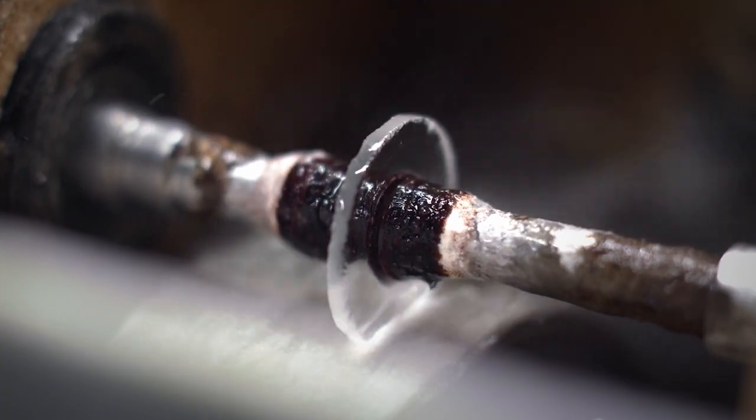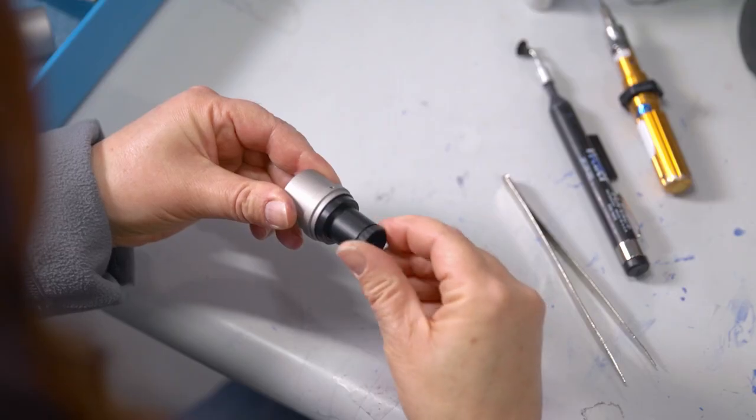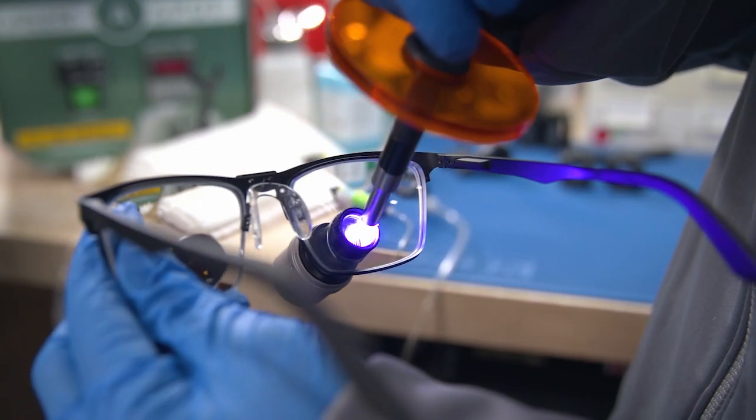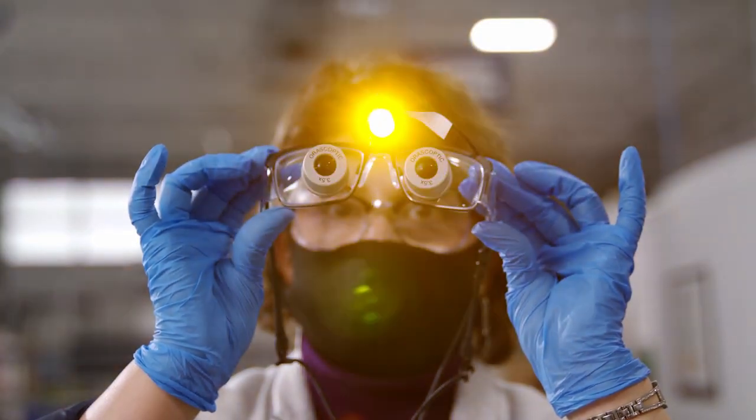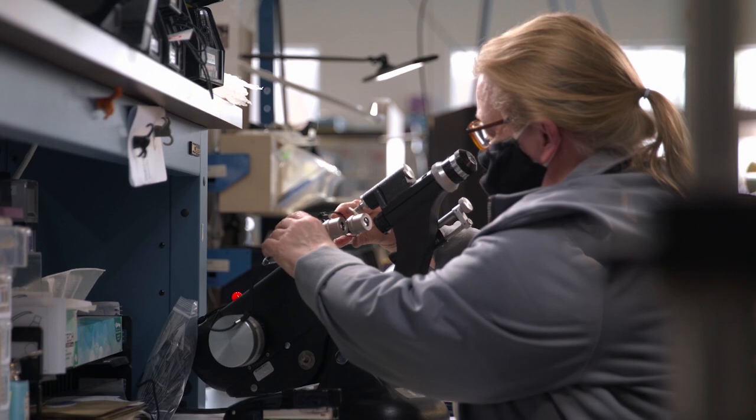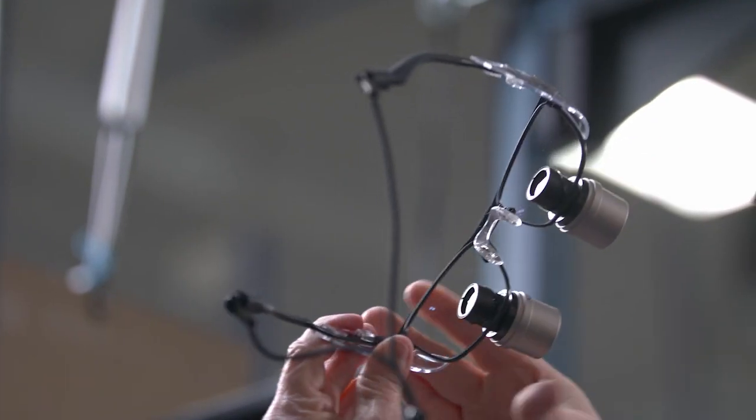From the grinding of carrier lenses and hand-built telescopes that match your prescription, to their convergence with the frames and features you've personally selected, to their finely tuned calibration to your individual specifications.